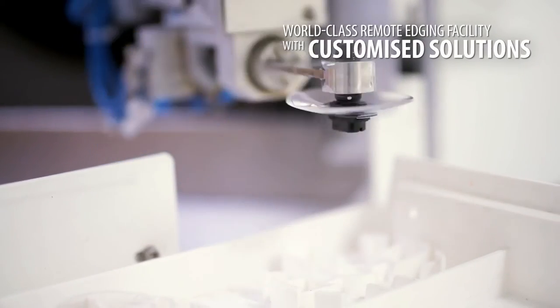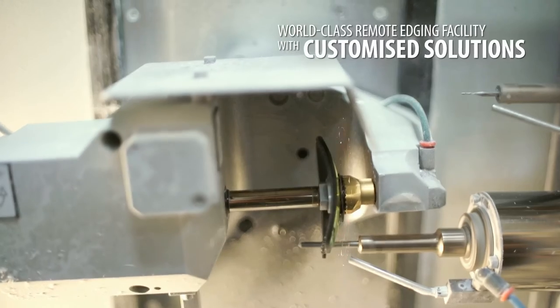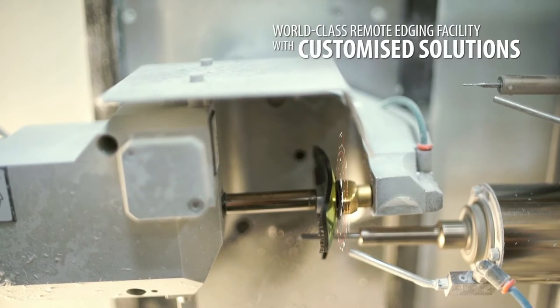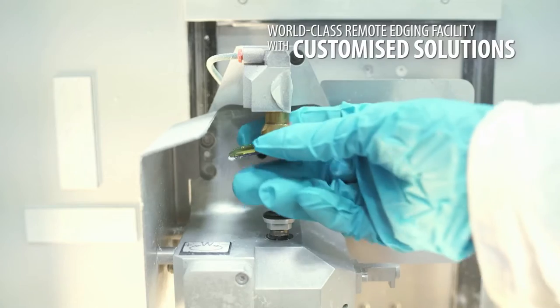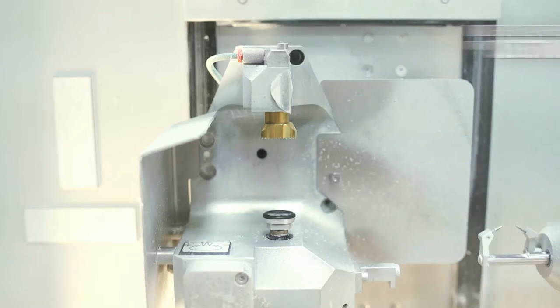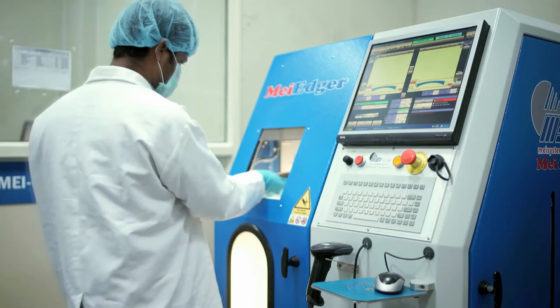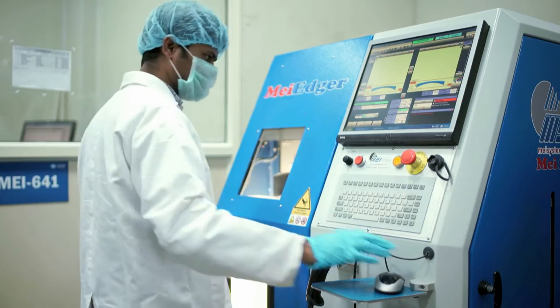Once the lenses pass the quality check, they are then stamped and properly packed. The lab also has provision for remote edging, which allows cutting and edging of lens as per frame specifications received via the internet.